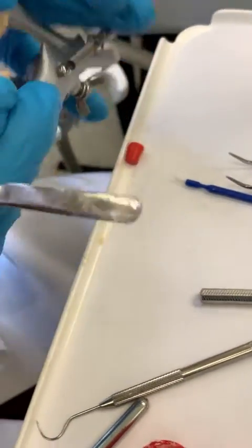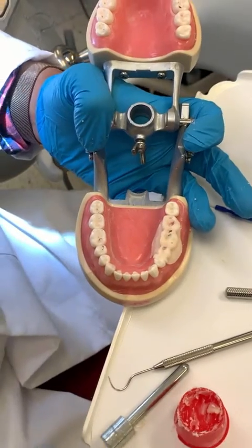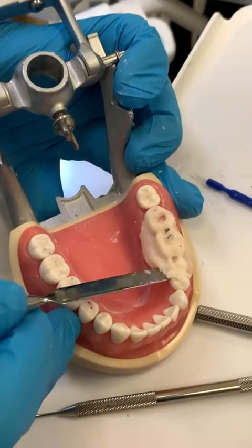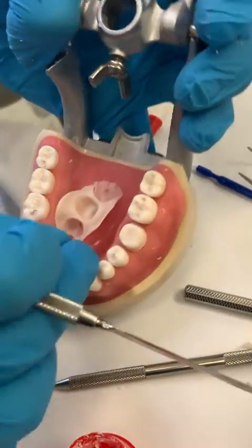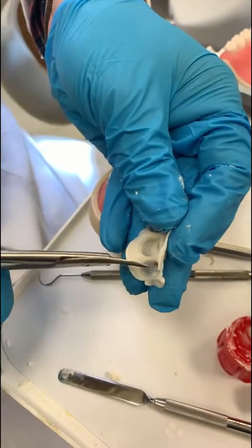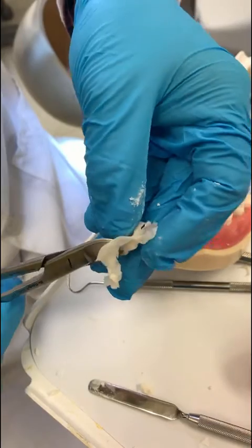Not ready yet, so I'm going to wait. There you go — easy. When it comes up I'm going to use the scissors to cut this one. We're going to go ahead and cut the excess with the scissors.